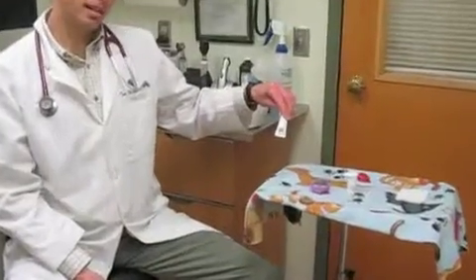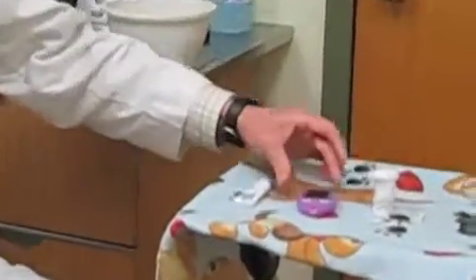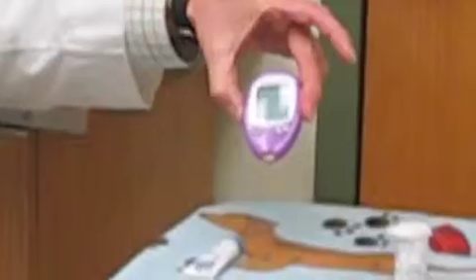So first we will review what you'll need. The basic things are going to be a Tupperware or some sort of container with warm water and a compress — that'll help vasodilate the skin and make it easier to get the sample. A little bit of Vaseline to put on the sample site, your blood glucose monitor, your blood glucose strips that go in the monitor, your lancet, and a little bit of gauze to put on after you've taken your blood sample.